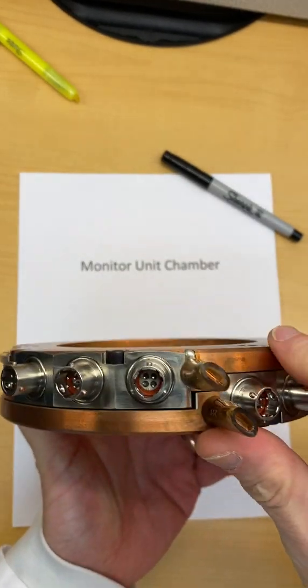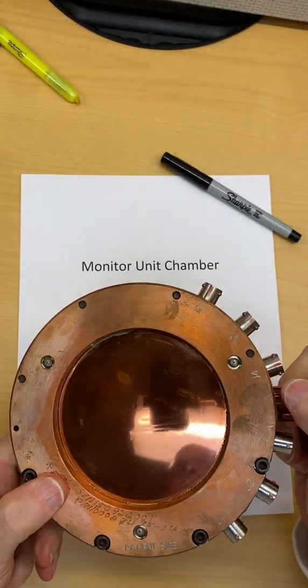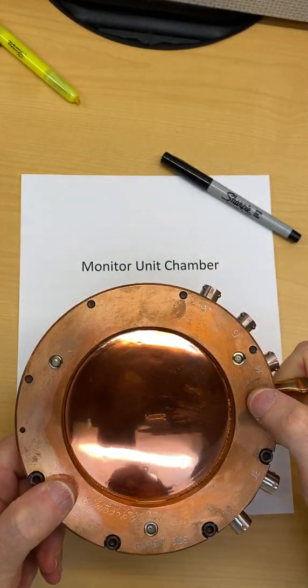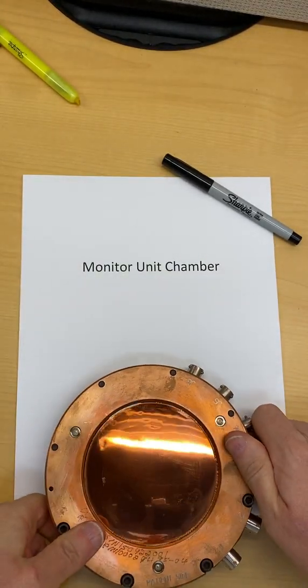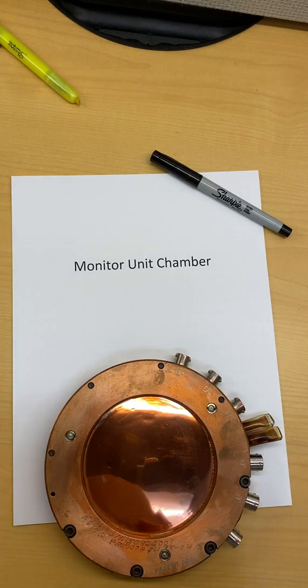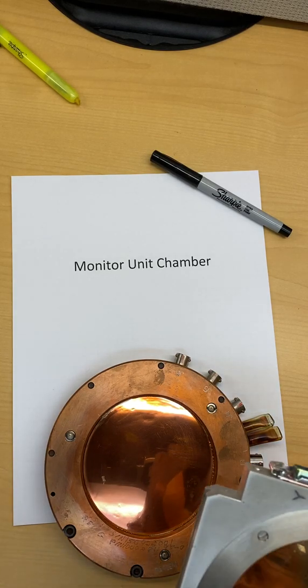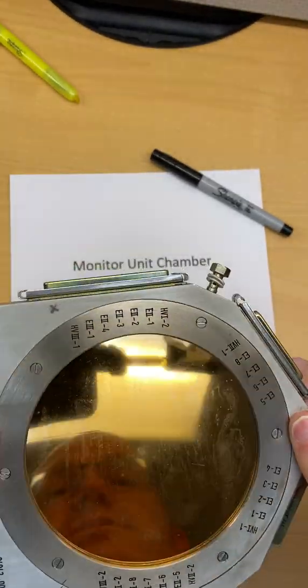The gas is sealed off there. It looks like it's largely made out of copper and some sort of mylar plastic. I really don't know what it is. This is sealed at the factory. Let's quickly compare it to this other monitor chamber from a very old machine.